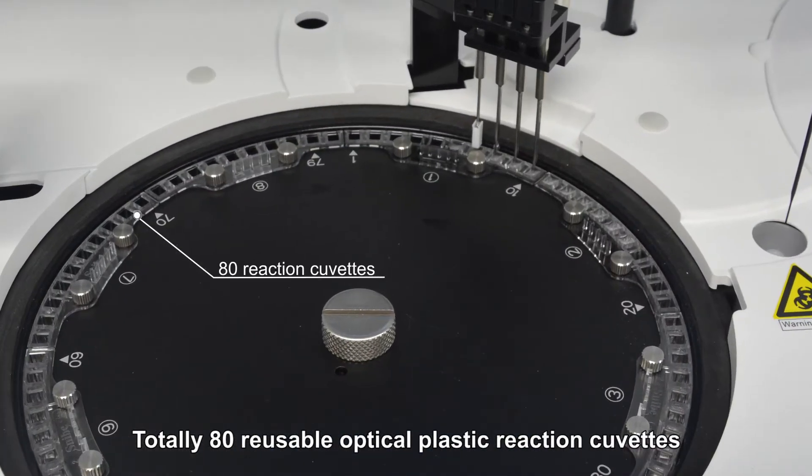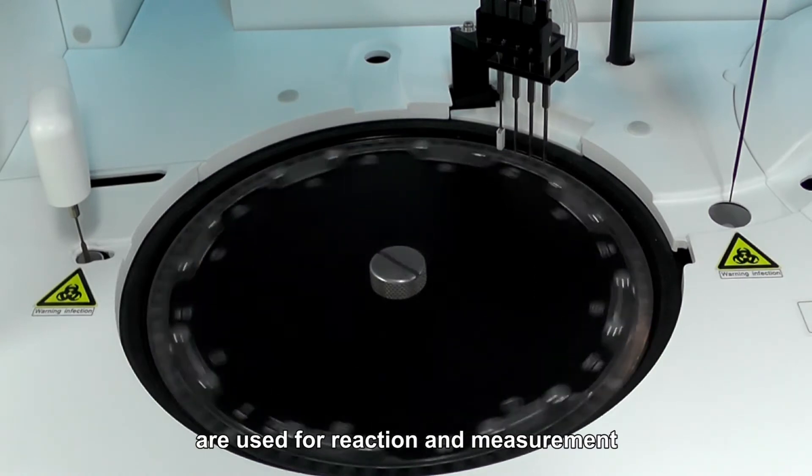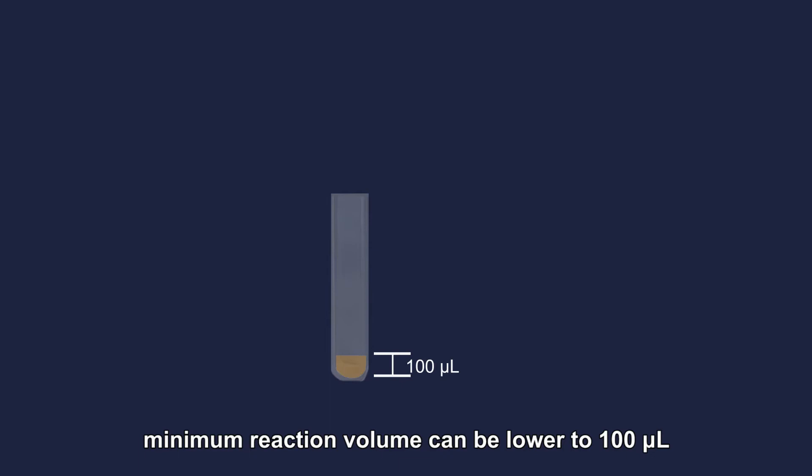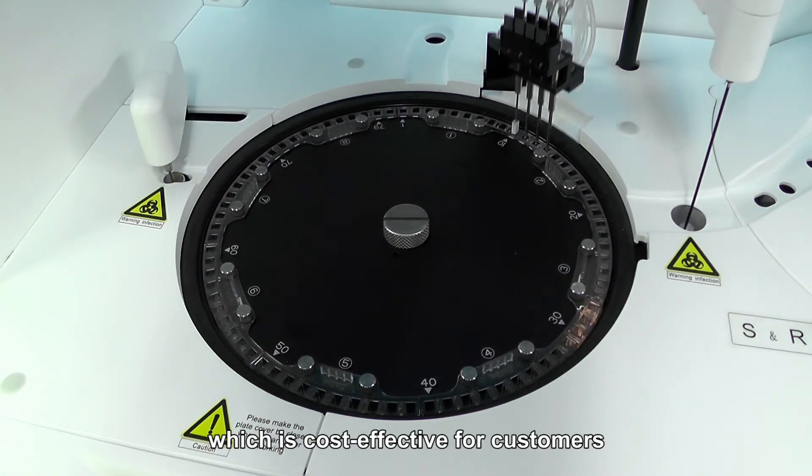Totally 80 reusable optical plastic reaction cuvettes are used for reaction and measurement. Minimum reaction volume can be lowered to 100 microliters, which is cost-effective for customers.